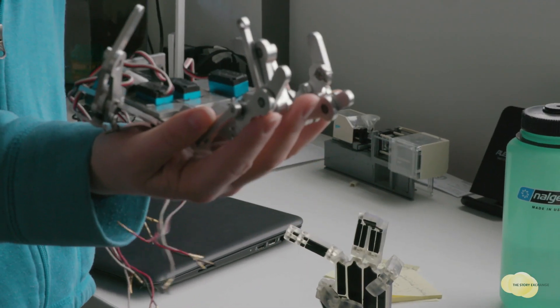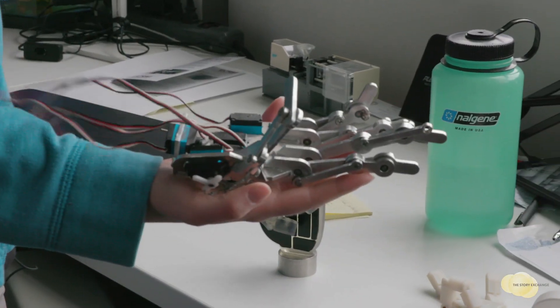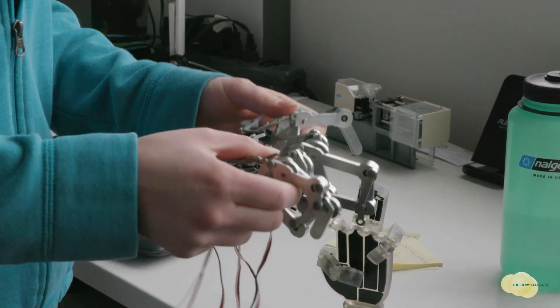The hand was a collection of joints that we had designed to resemble a human hand. It had lines that would allow you to wear an ear cuff which monitors your concentration, your brain power — and that would allow you to open and close the hand.